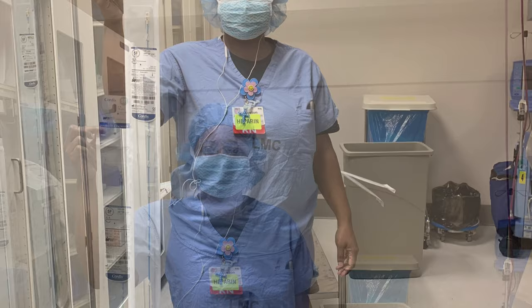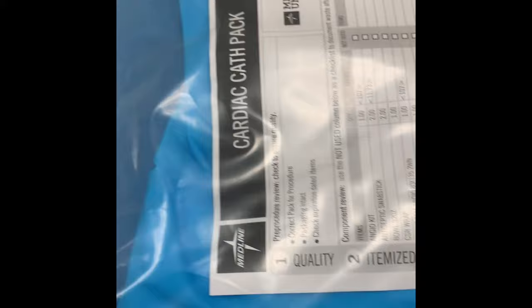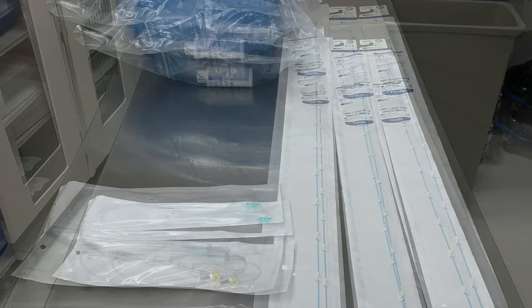Hi, I'm Keele Williams RN. Welcome back to my YouTube channel. In this video I will be going over some equipment used for left heart catheterizations or coronary angiograms. An angiogram is a procedure designed to allow physicians to visualize the arteries of your heart.